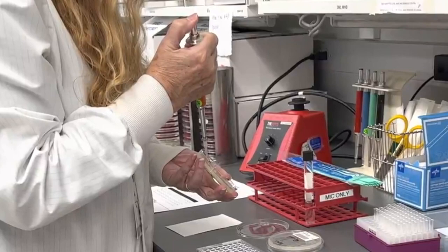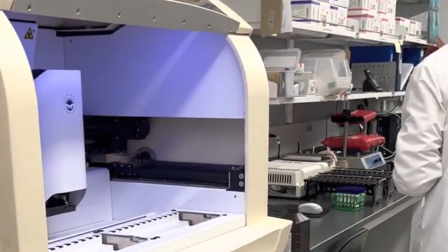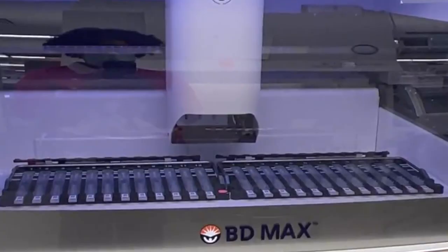We process stool specimens for the detection of gastrointestinal pathogens using the BDMAX system. This multiplex PCR system can detect and differentiate between viral, bacterial, and parasitic causes of infectious diarrhea. This test allows for rapid diagnosis of infections caused by bacteria including salmonella, shigella, and campylobacter; viruses including norovirus, adenovirus, and astrovirus; and parasites including giardia, cryptosporidium, and entamoeba histolytica.